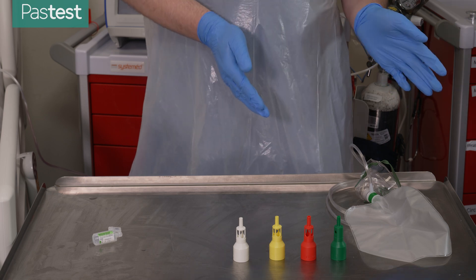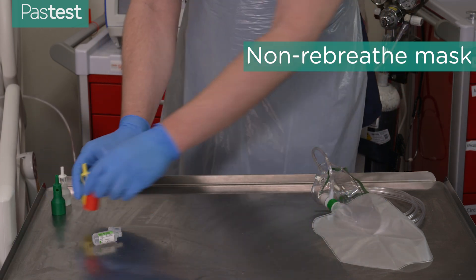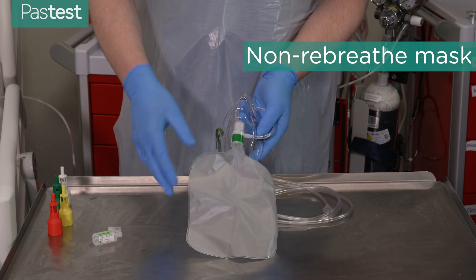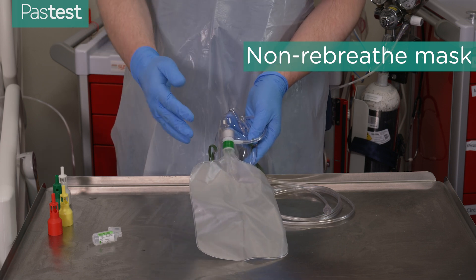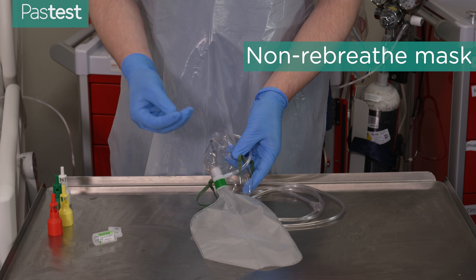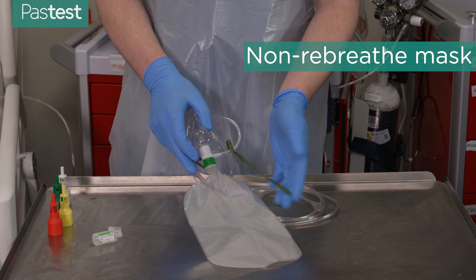Our final device is the non-rebreather mask. It looks very similar to a simple mask but has an extra bag added to the bottom, which creates a reservoir of oxygen that is added to the air the patient breathes in through the mask. The other difference is that the valves on the side are one-way valves — they allow CO2 to come out but prevent atmospheric air from coming in and mixing with the oxygen from the mask.